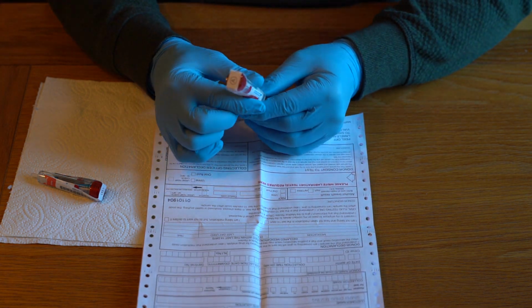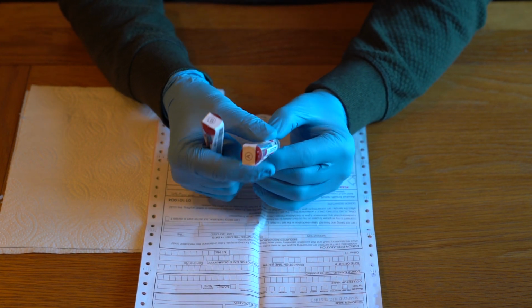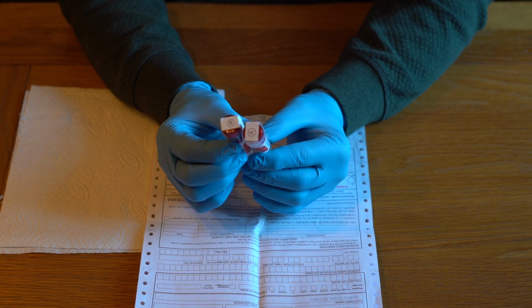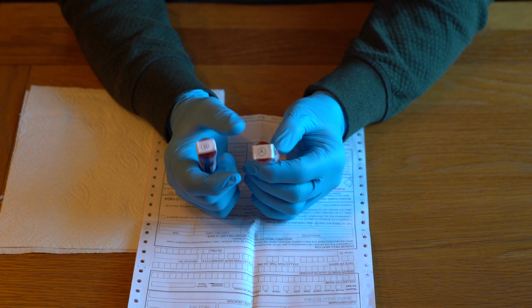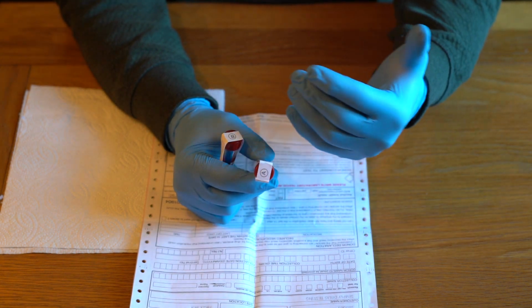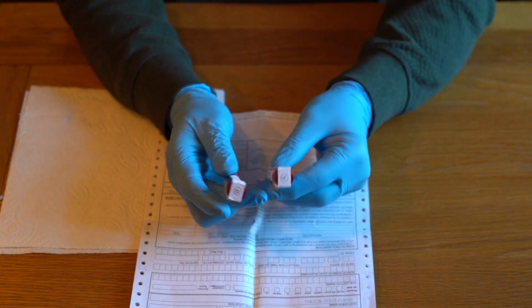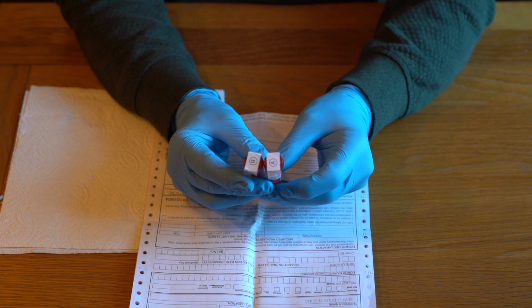So you should have the letter, let's push that down properly. You should have the letter A and B on the tops of the caps. There can't be any suggestion that these have been opened after the employees left the room, or that the samples have been tampered with, and that's why there can't be any tears or rips. So they now go over the tops of the caps.